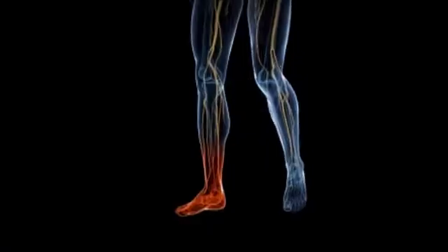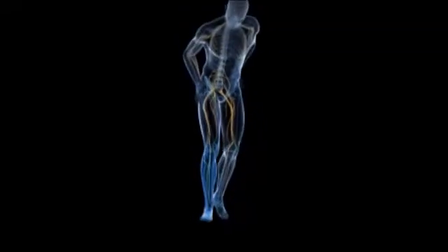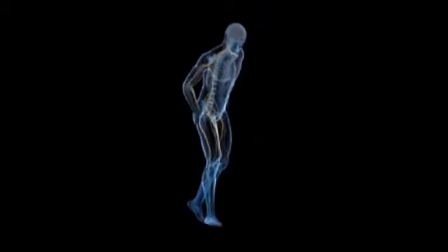As a potential new target for pain relief, the dorsal root ganglion expands the range of neurostimulation options and sets a new standard of care that may help improve patients' lives.